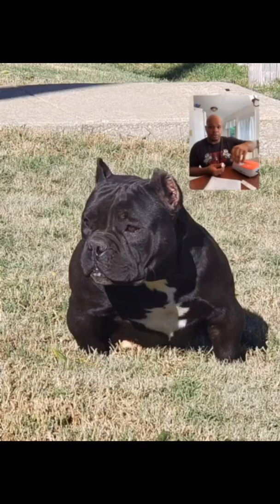Dog number 2 — okay, so I just tested that girl right there, my girl Piggy. Piggy is at a 4.43. I'm looking for 8 — that's my ovulation number. So I'll skip tomorrow, which is Thursday, and I'll test her again Friday and see where we're at.